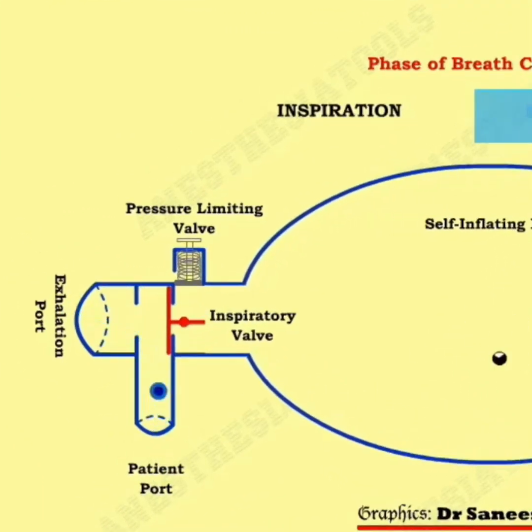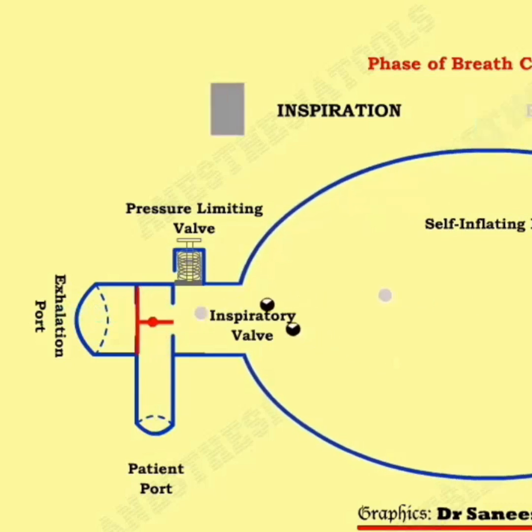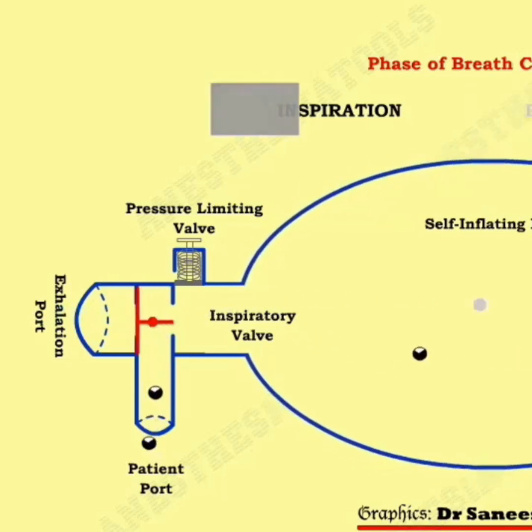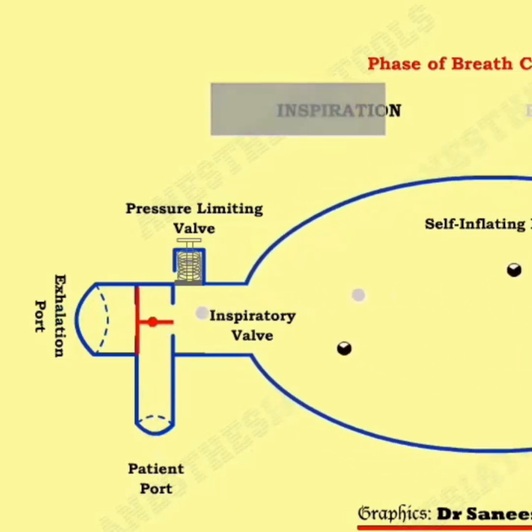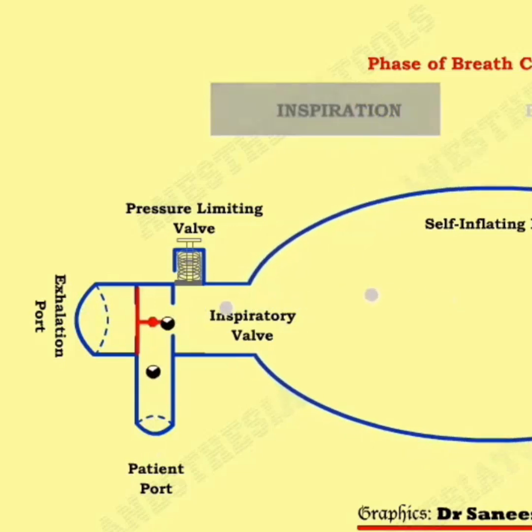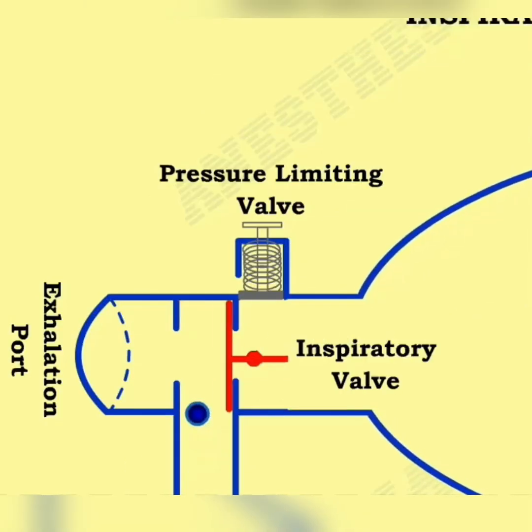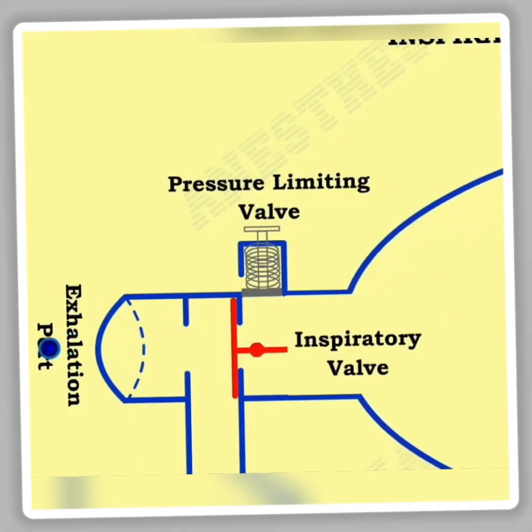During inspiration you can find the inspiratory valve moves forward. The bag gets emptied into the patient interface, and when the patient exhales the valve gets closed and the exhaled gas goes through the exhalation port.